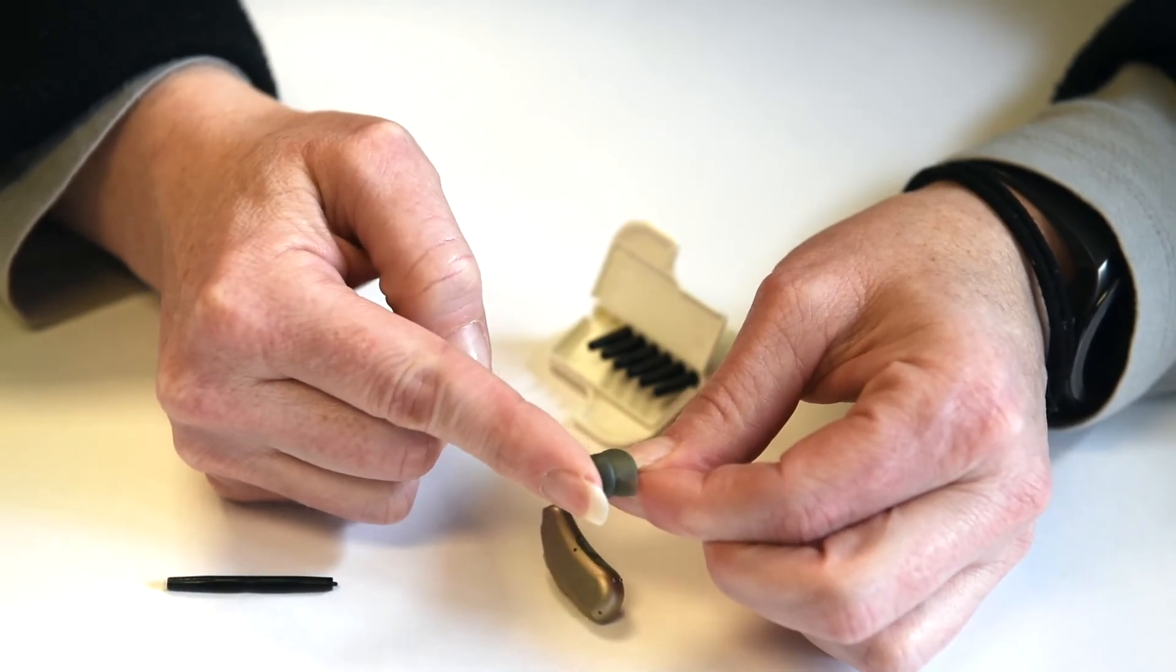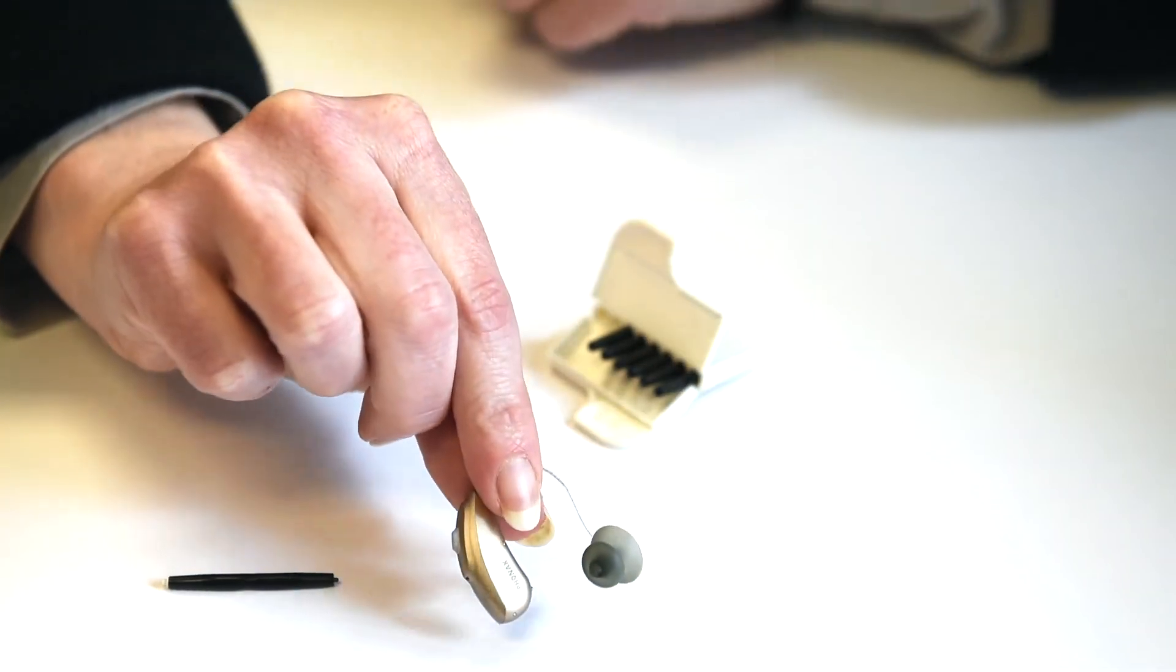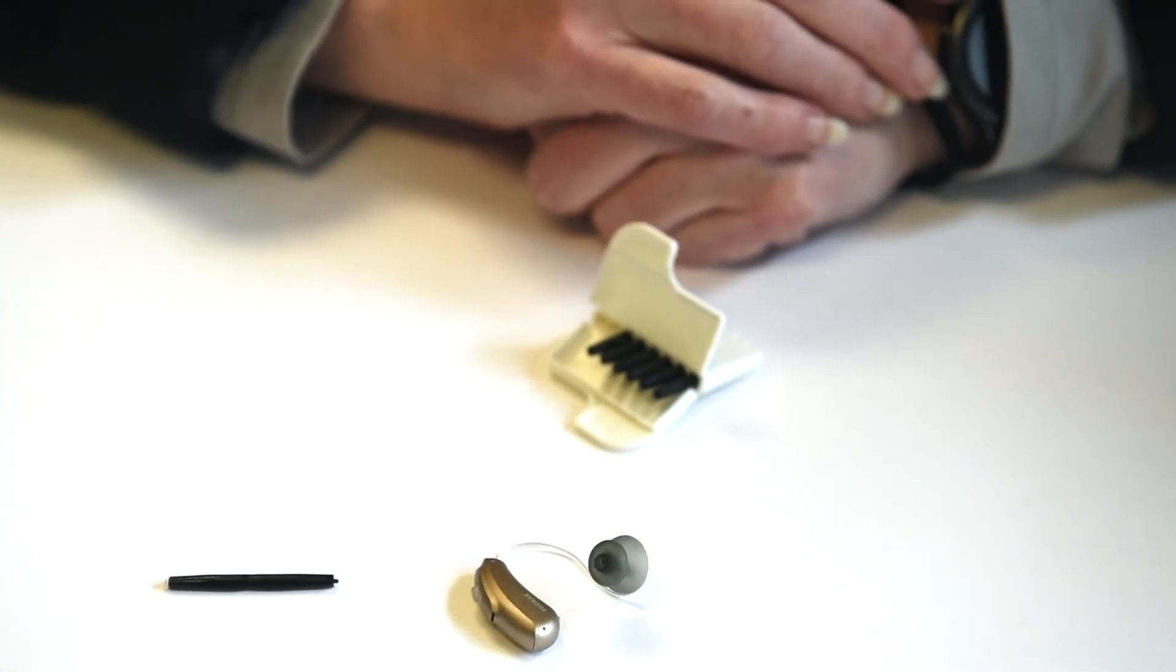Just give it a good push and make sure it's on there securely. And now your hearing aid should be working well again.